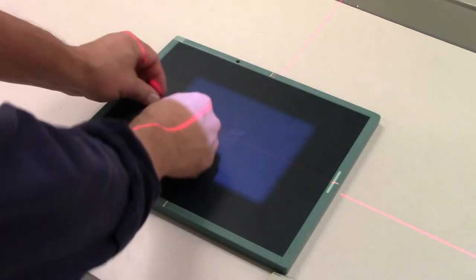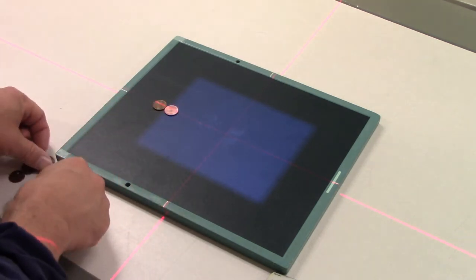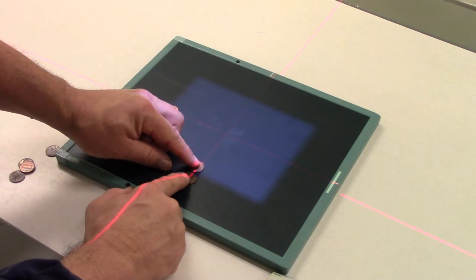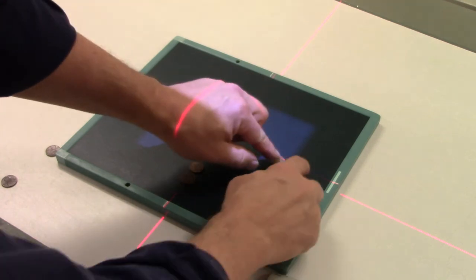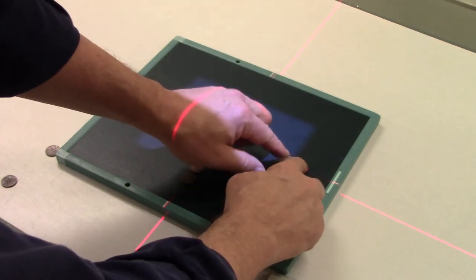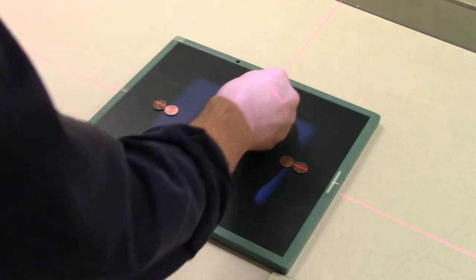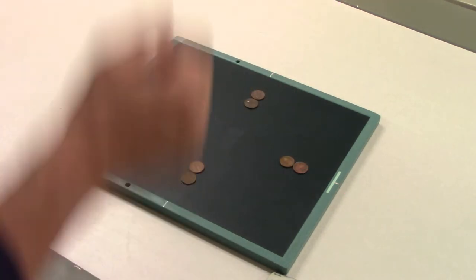Here's the setup. What I'm going to do is put my pennies together like this so that each pair of pennies, there's one inside the collimated field and one outside the collimated field. My margin of error for this experiment is two percent.